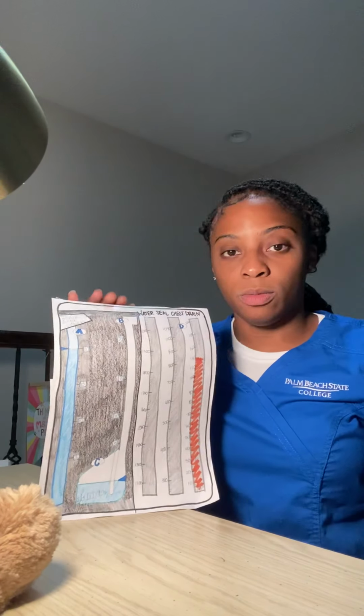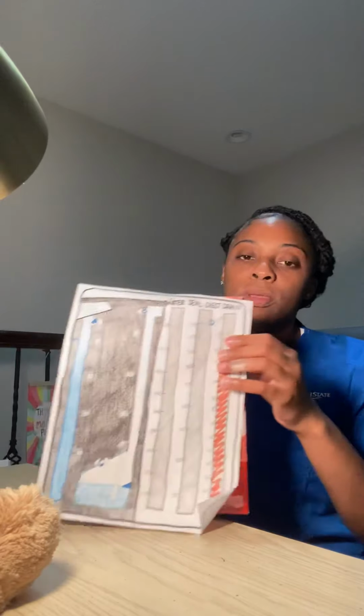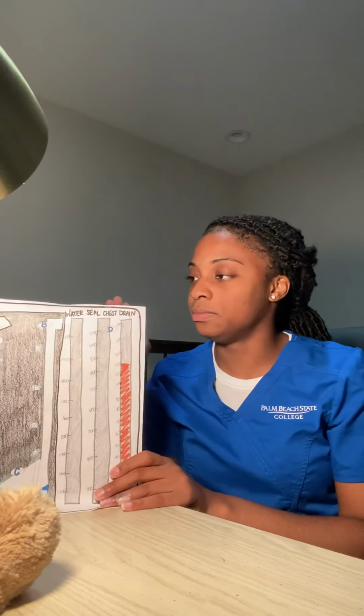So with a chest tube, the most important thing that you need to be mindful of is the chest drainage. This drainage system needs to always be below the patient's chest. It's never okay for the patient to be lying in bed with the chest tube laying in bed next to them. It needs to be below the patient's chest. So most times, if they're connected to an IV pole, you can have it attached to the IV pole, or even attached to the bottom of the bed, the side railing of the bed maybe. But it needs to be below the patient's chest.